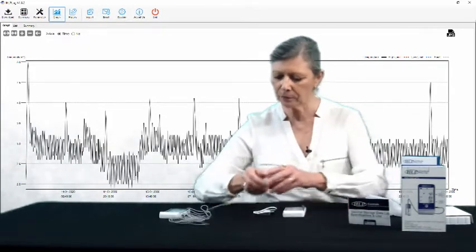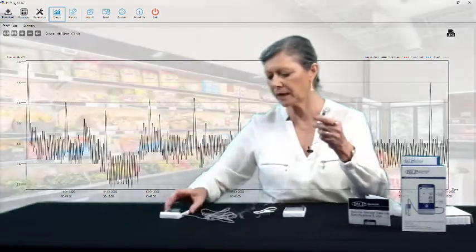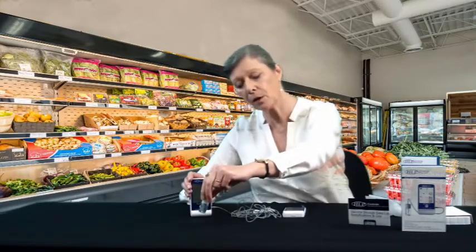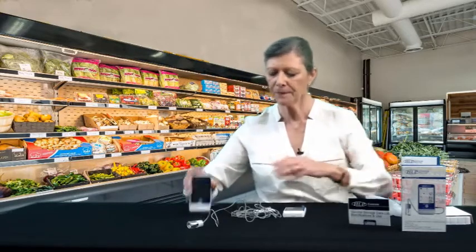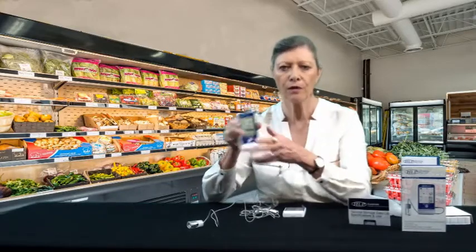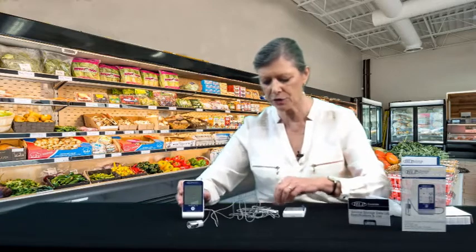The sensor cable that comes with it is about two meters long, with the sensor located inside a small bottle. You can unscrew the cap and fill the bottle with glycol or water if you wish, or don't use the bottle at all — it's entirely up to you. Once you have the sensor how you want it, place it in about the middle of your fridge, run the cable outside, and mount the MediLog2 unit on the side or front of the fridge — wherever is most convenient for you to see and use.